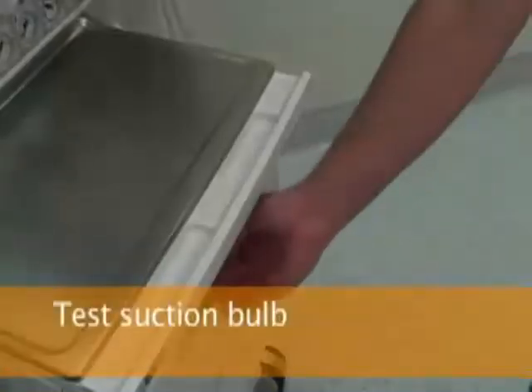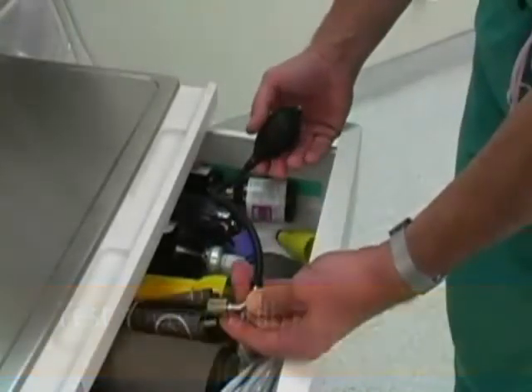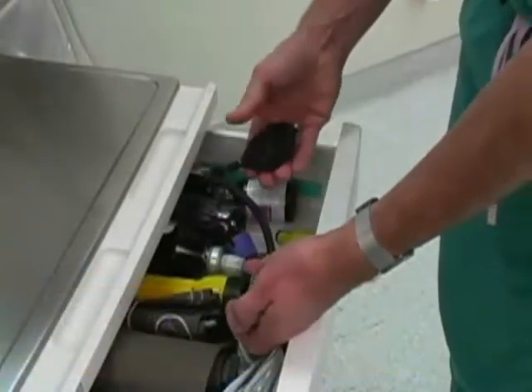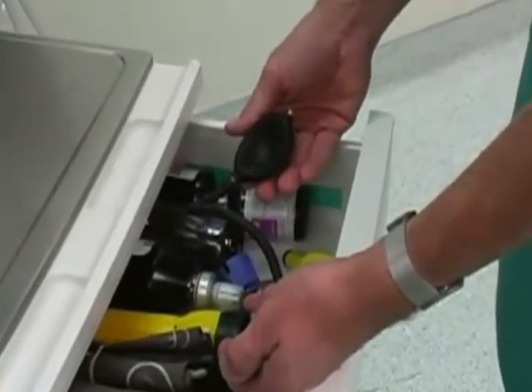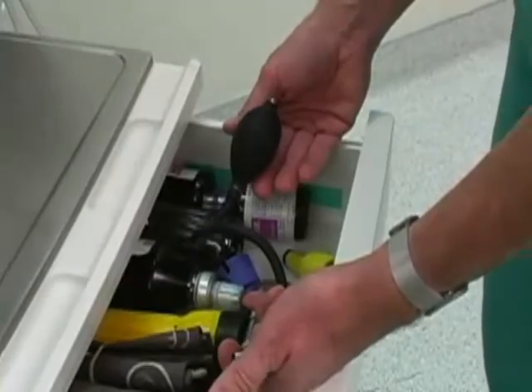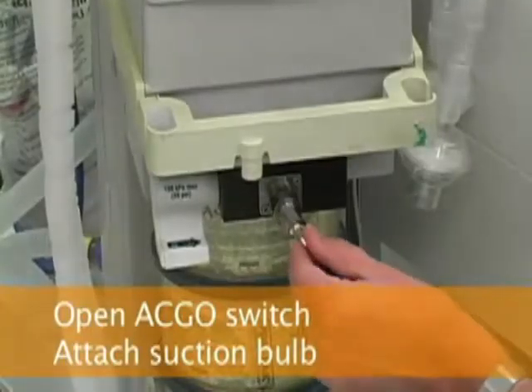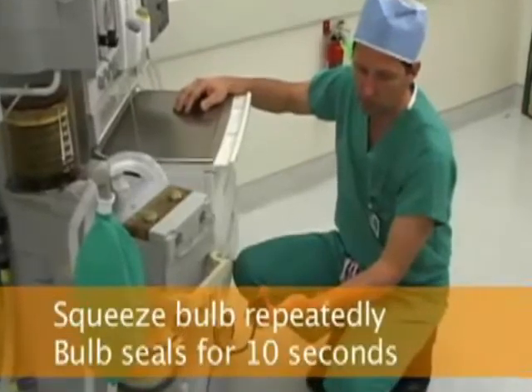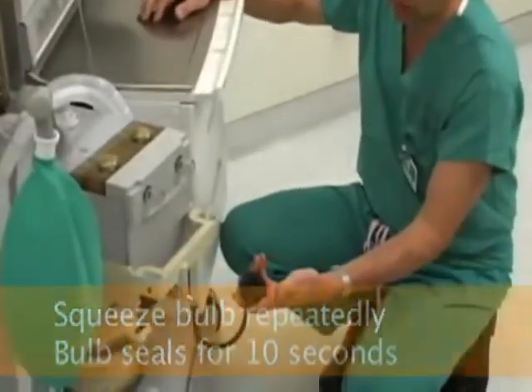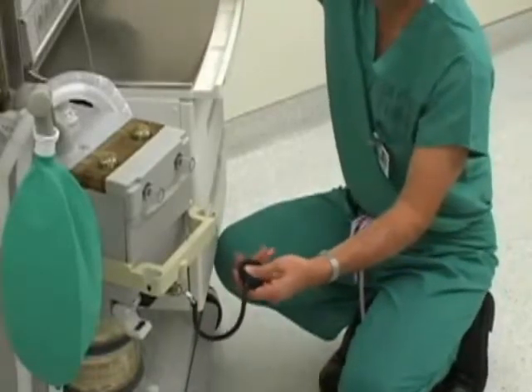Disconnect the breathing circuit from the machine to have easier access to the common gas outlet. Locate the suction bulb in one of the machine drawers. Test the suction bulb by occluding the connector end with your finger and by verifying that the bulb remains deflated after you squeeze it. Then open the auxiliary common gas outlet switch by swinging the lever down. Attach the suction bulb to the common gas outlet and squeeze the bulb several times till it stays deflated. Verify that the bulb remains deflated for 10 seconds.